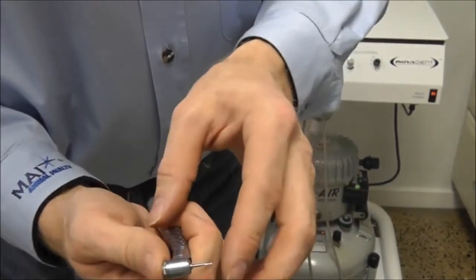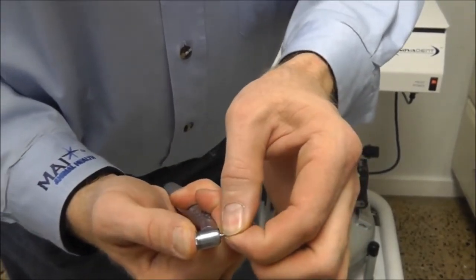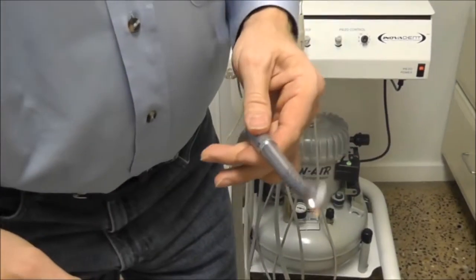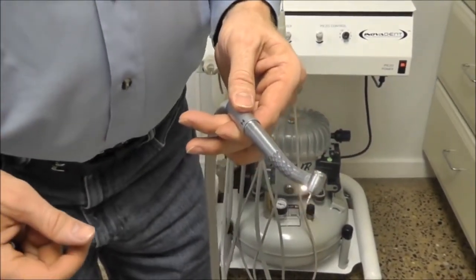Seat the burr into the port, pressing and seating it the rest of the way. Again, press on the pedal, running the oil through.